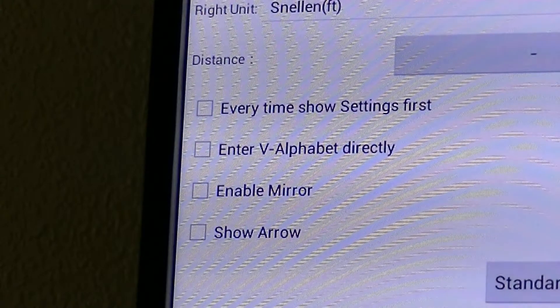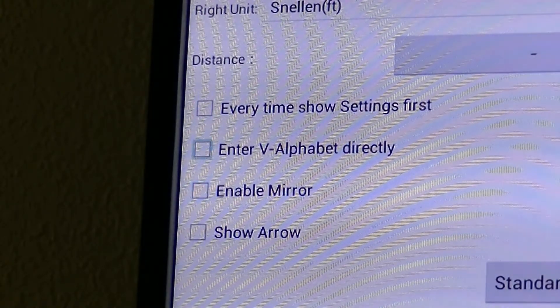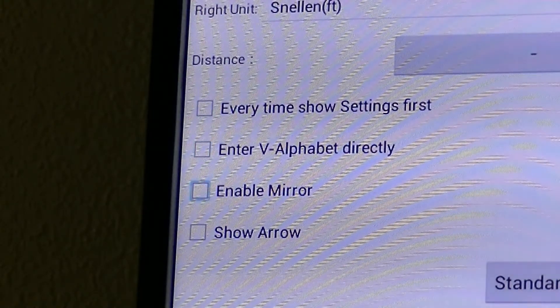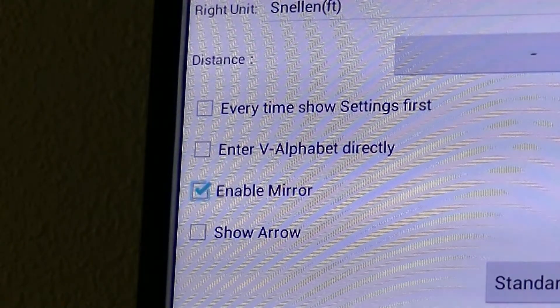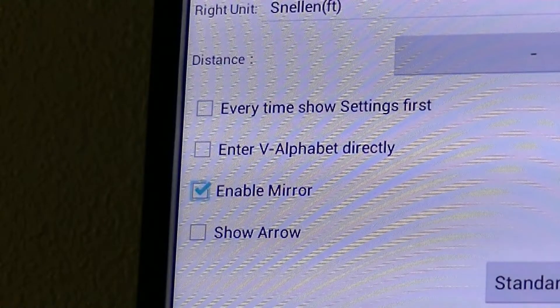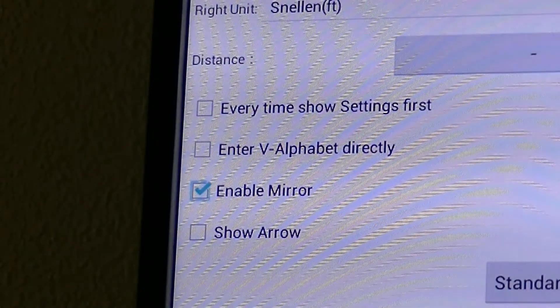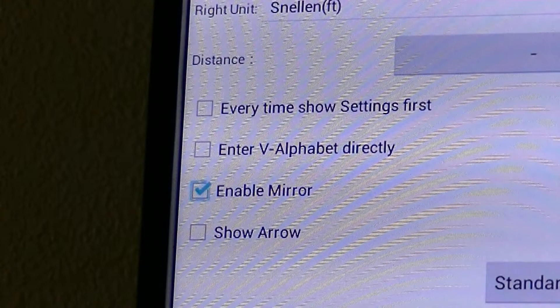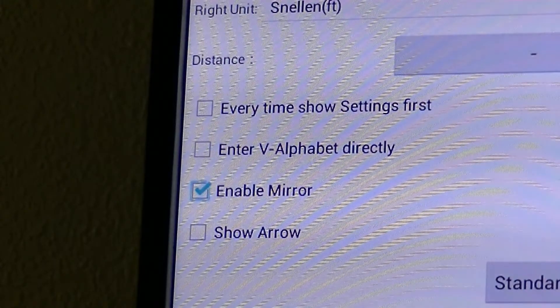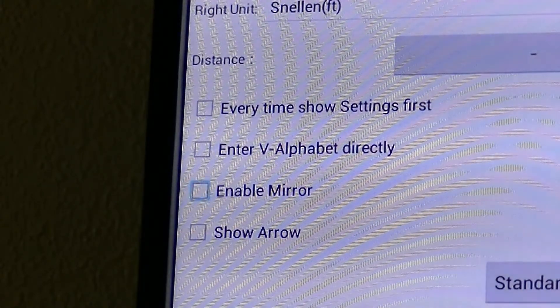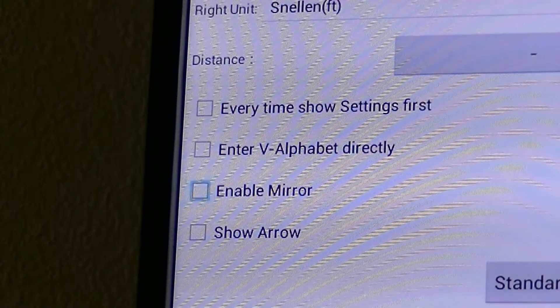To show you how this works, we're going to come down here to enable mirror. I'm going up, down, and I'm going to hit the center button. You see that will put a blue check mark in enable mirror. So if you're using this in a mirror system, that will flip and reverse the chart so that the patient viewing it in the viewing mirror will see it correctly. That must be used if you're using a mirror system. To uncheck it, just press the center button again — so it's a toggle: on, off.